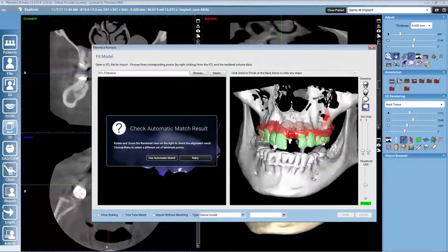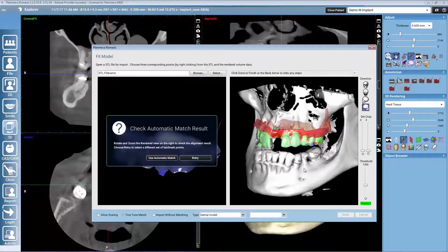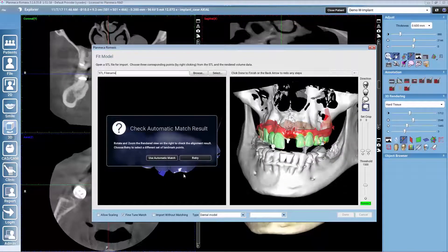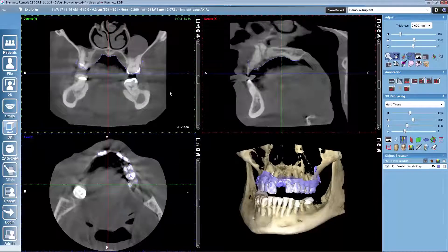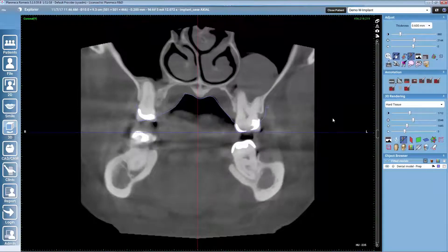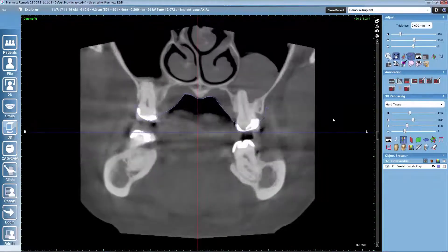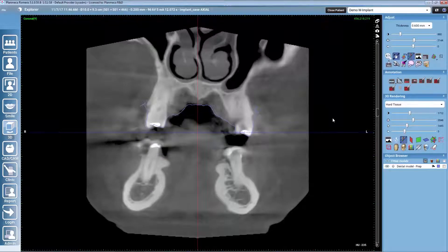Romexis shows a deviation map. When the crowns are green and the gingiva is red, the match should be good. We select to use automatic match and then verify the match — for example, from the coronal view by scrolling and checking the fit of the STL model to the CBCT volume.